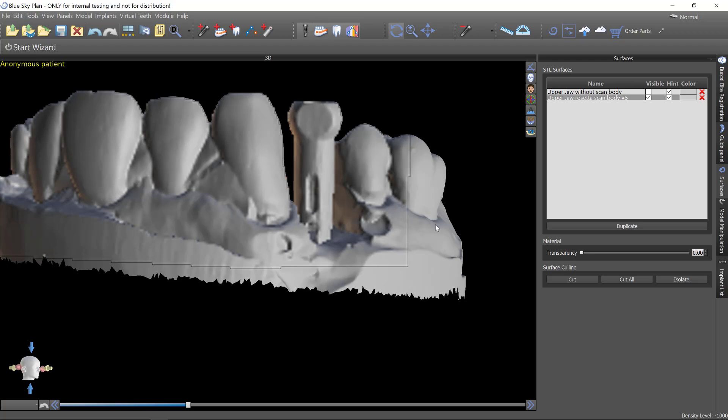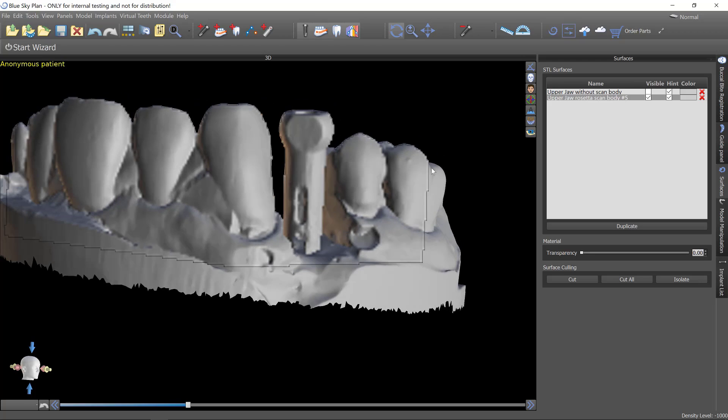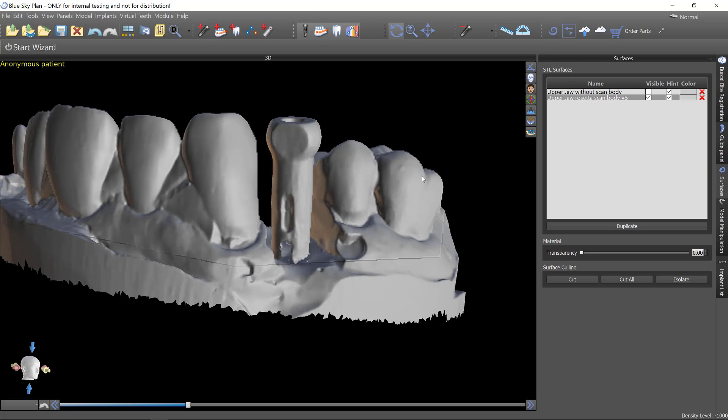But I think you'll see that it's on the right track. This will enable you to make custom abutments, crowns, bridges, wax-ups, all of those things. So let me just show you a simple case here.